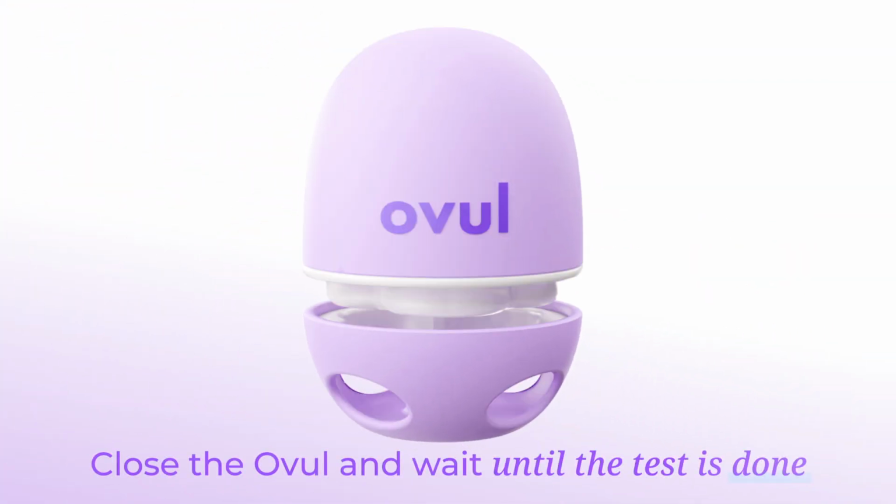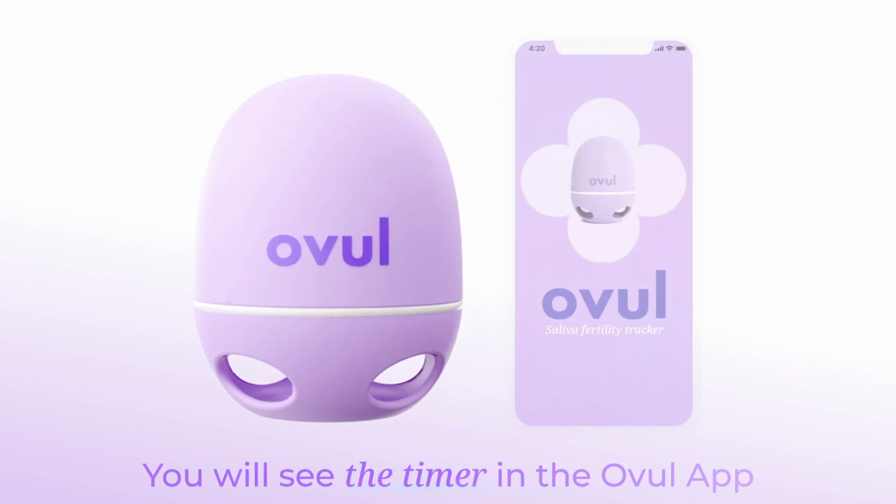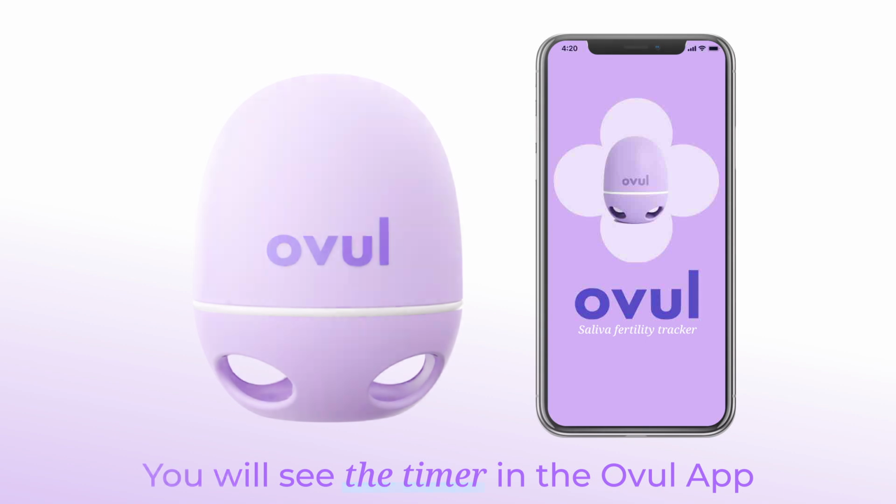Close the Ovul and wait until the test is done. You will see the timer in the Ovul app. Check the result in the app.